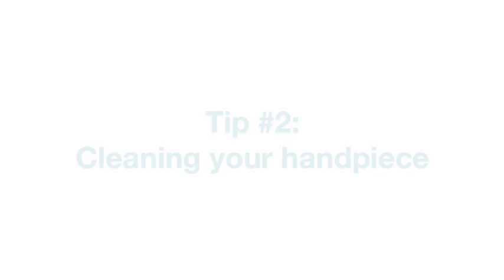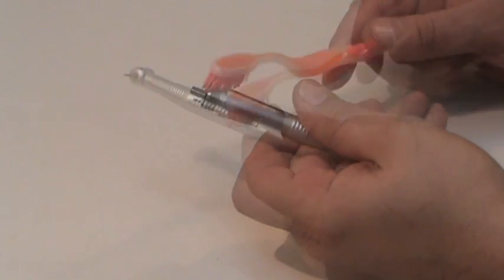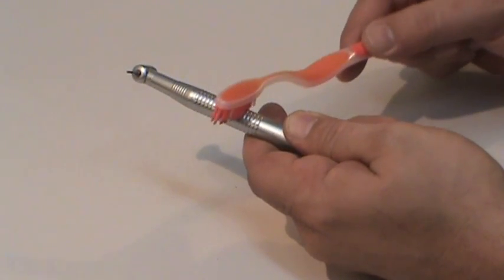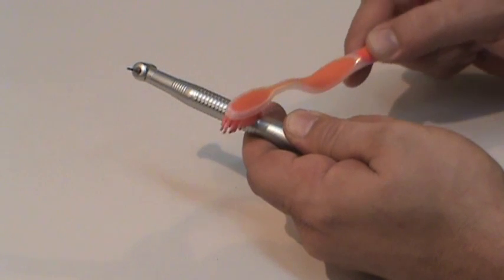A toothbrush and hot, soapy water can be used to clean the handpiece threads and handle knurls. The handpiece exterior can also be washed with a germicidal detergent or cleaner.